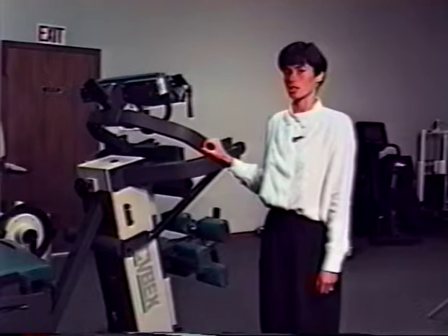For complete written instructions, please refer to your user's guide. Prior to isokinetic testing on the TEF modular component, it is essential that the clinician perform a thorough patient evaluation.